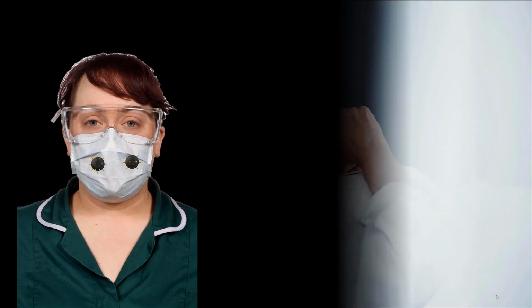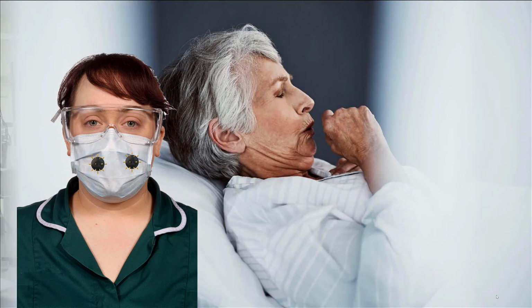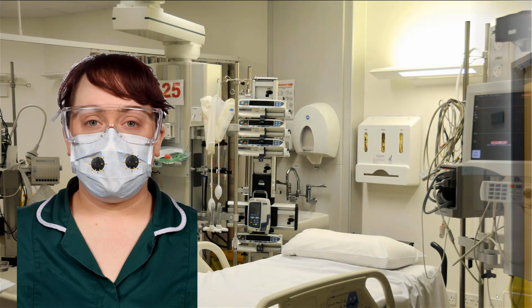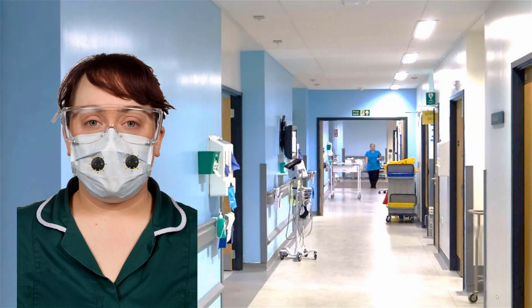In particular areas, it is recommended staff do not change their surgical mask and eye protection between patients whilst working within designated boundaries for that session. A session ends when the staff leave the designated care setting exposure environment. This helps preserve PPE stocks, but more importantly, by reducing the number of times the PPE is removed, lessens the risk of acquiring infection through improper removal.